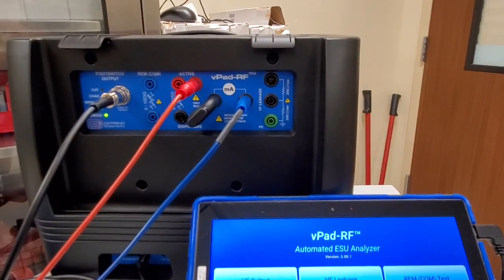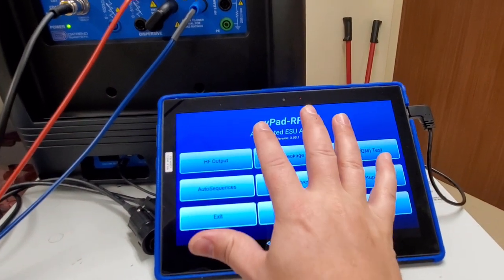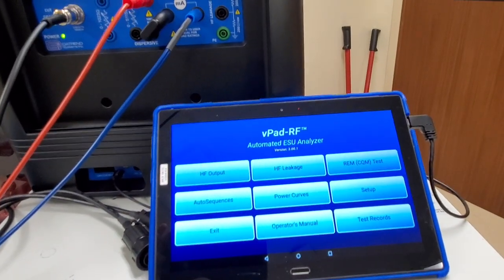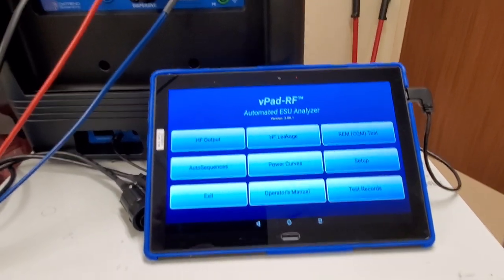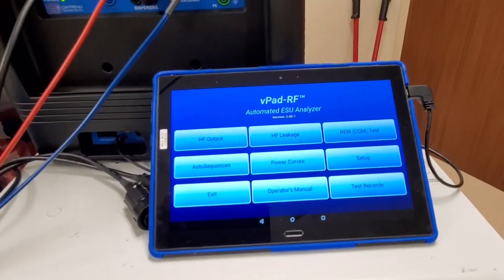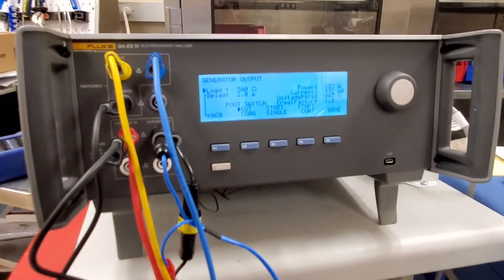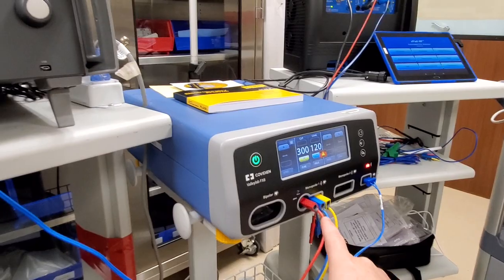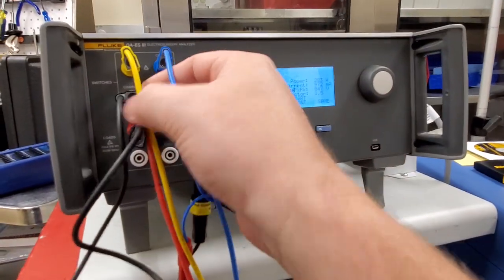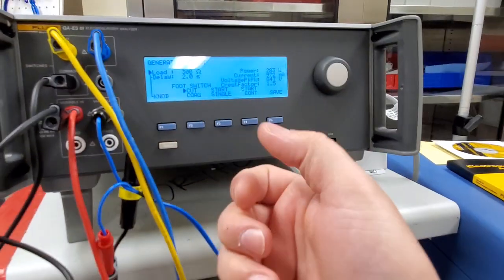That is the VPAD RF. Because I have the display I have a little more ability to go in and modify things and get it going quicker. But let's go to the other new entry. I unboxed the Fluke a couple of days ago and it took over two hours just to figure out how to hook it up to get an output. This guy uses the connections up here just like on your pencil, whereas this one has a designated foot switch output.